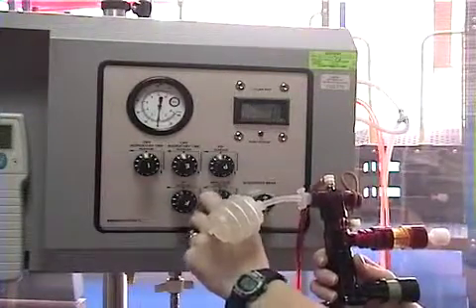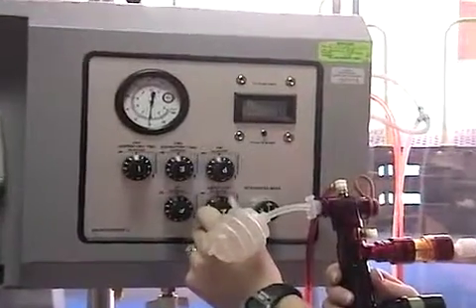Increasing the amplitude returns the vent to the previous high frequency rate setting.